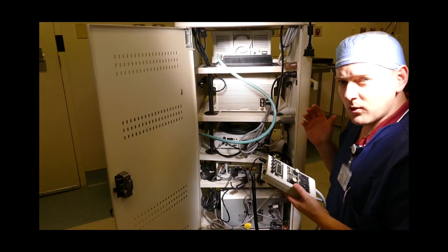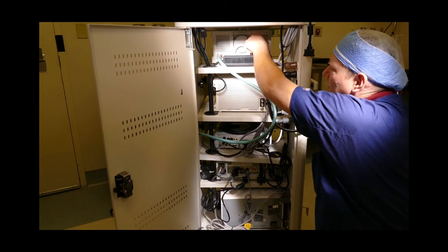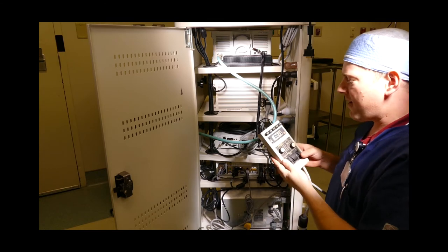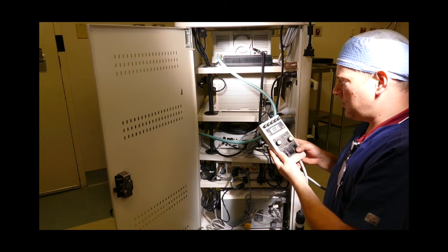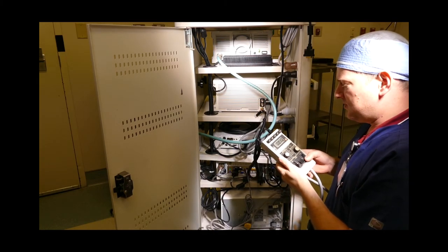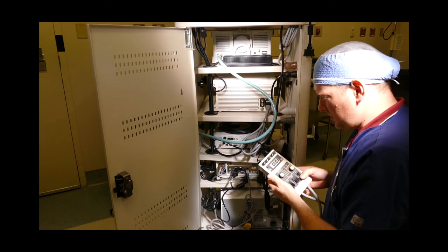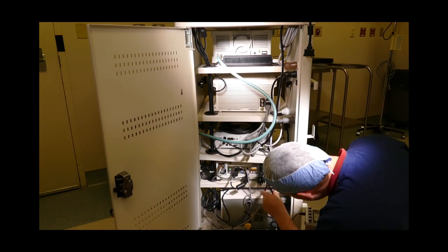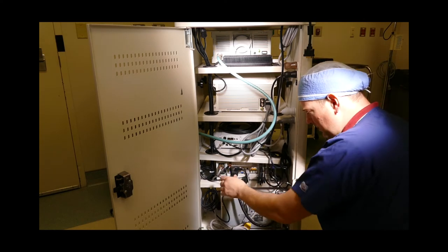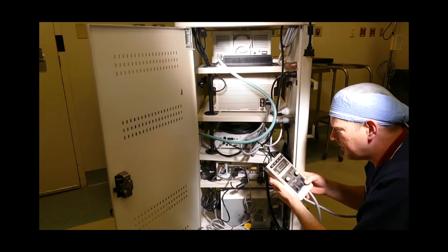The next tests are the leakage checks, performed with the power off and the power on. First, checking the leakage of all devices with the power off. Each device reads 0, lift ground — 0. This is consistent across all components including the printer: 0, lift ground, 0.